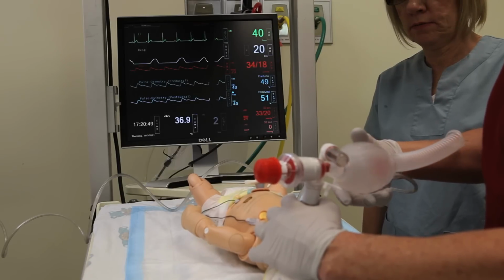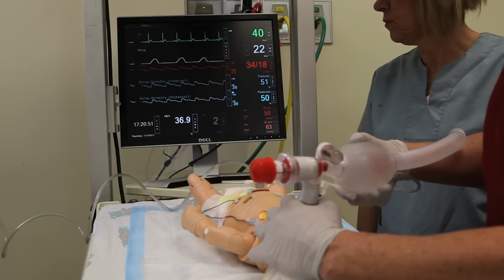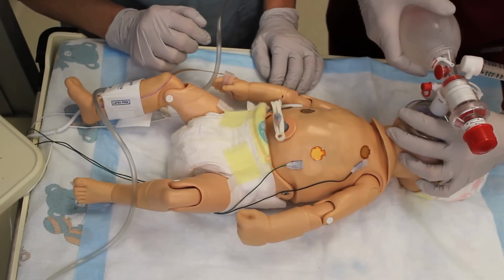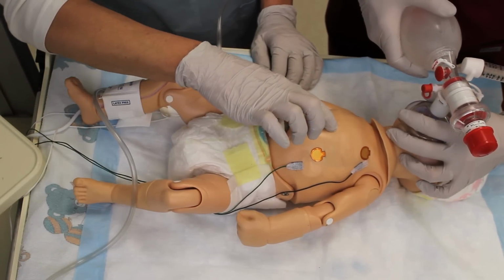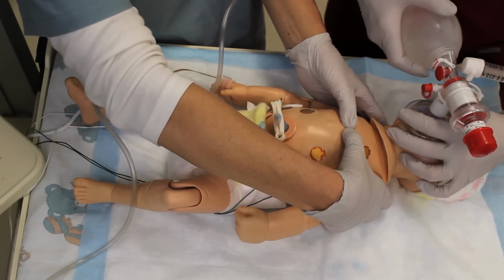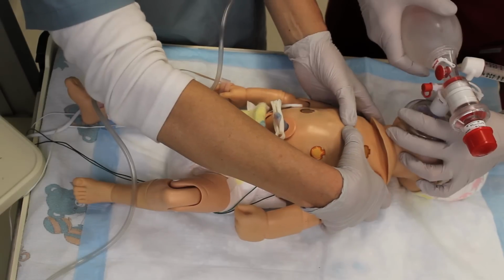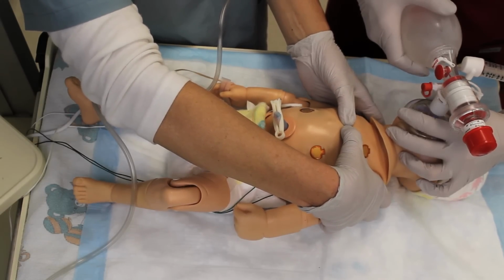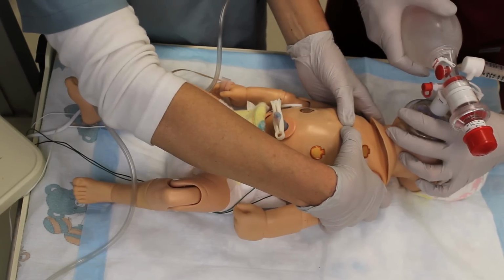Now, we're going to show you how to coordinate chest compressions with bag mask ventilation. When you do chest compressions, find the xiphoid process and then find the internipple line. You want to give compressions right in that space between the nipples, because if you don't give compressions there, then it won't register the correct rate. We're going to demonstrate for you coordinated compressions to ventilations. We're going to follow the NRP algorithm of 3 to 1.